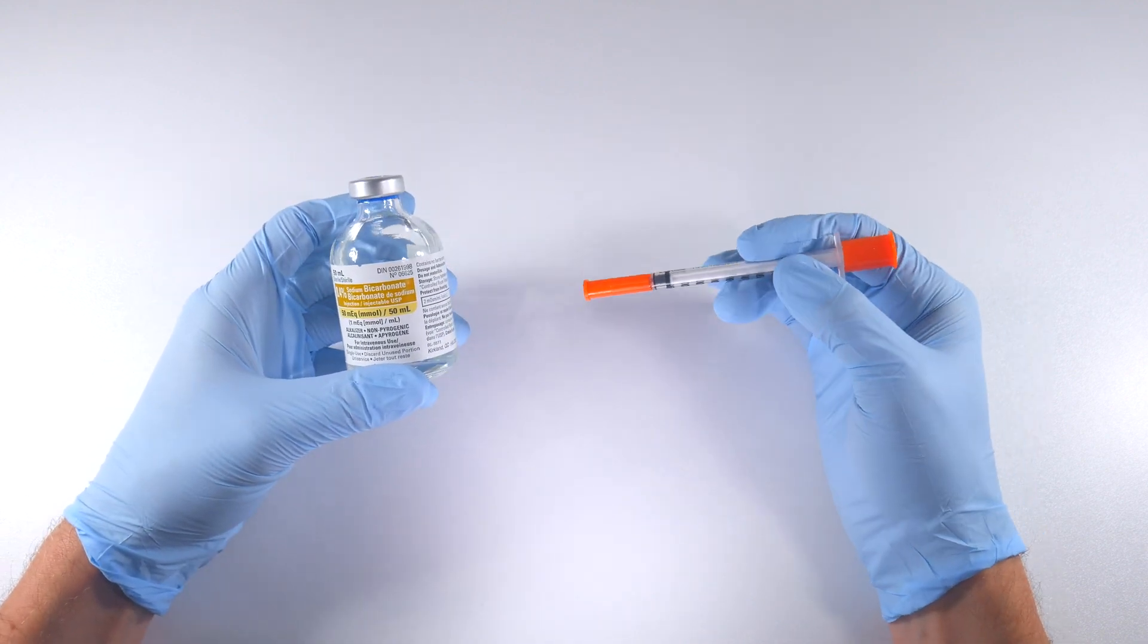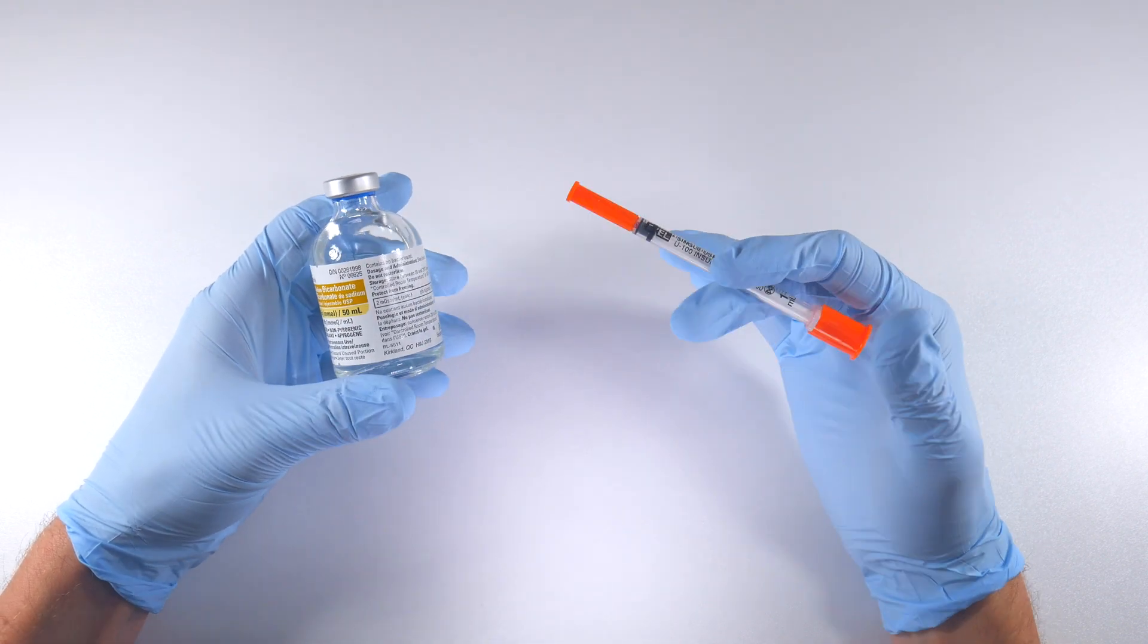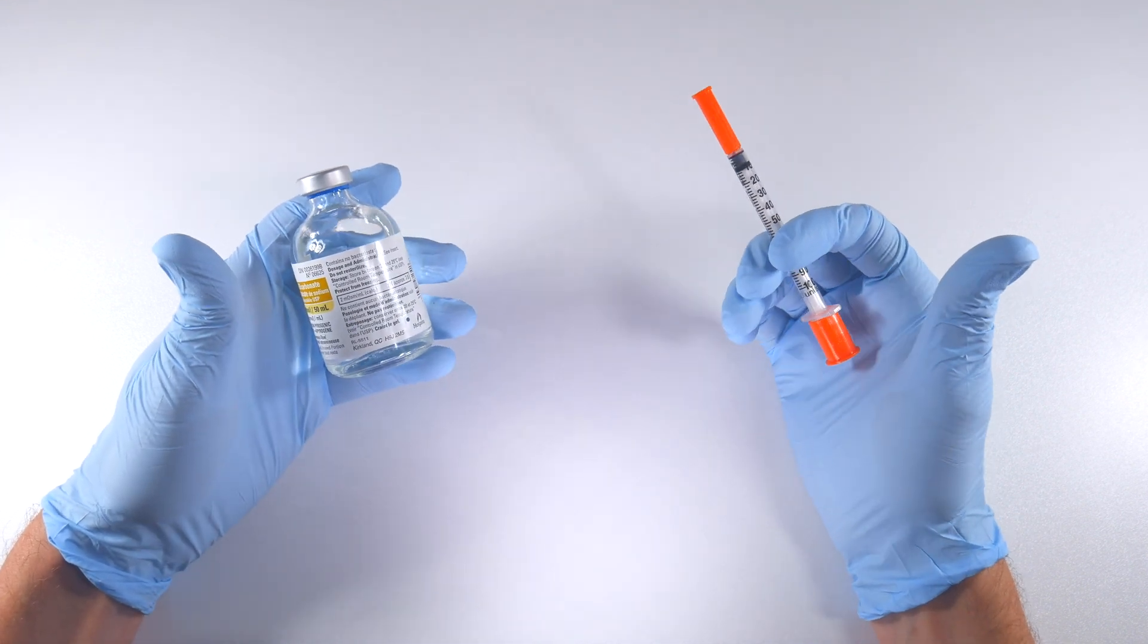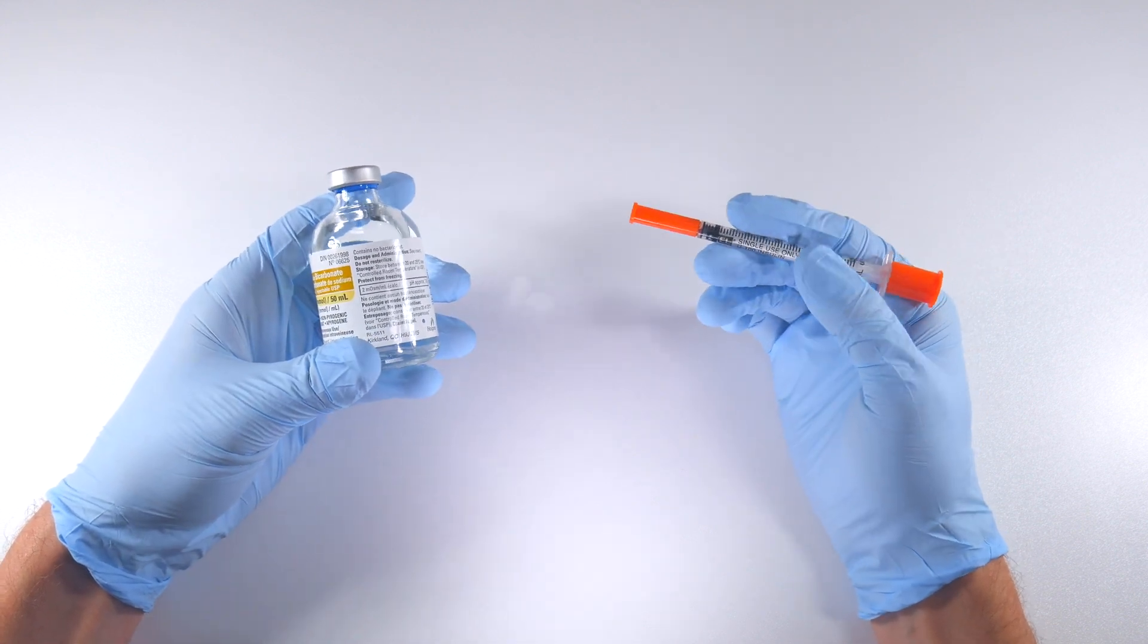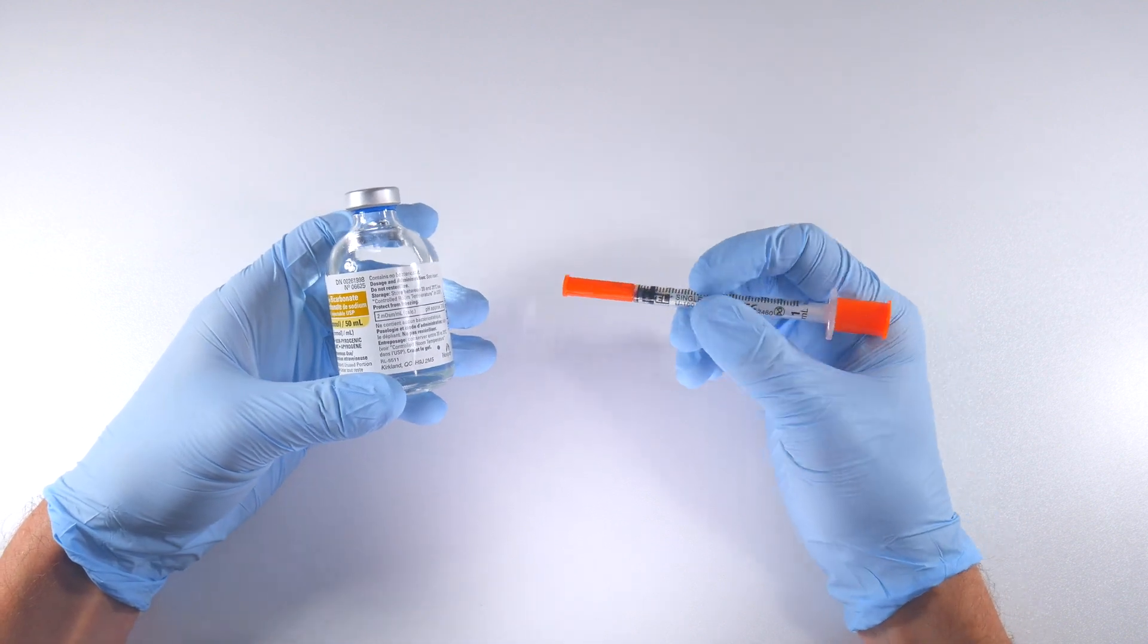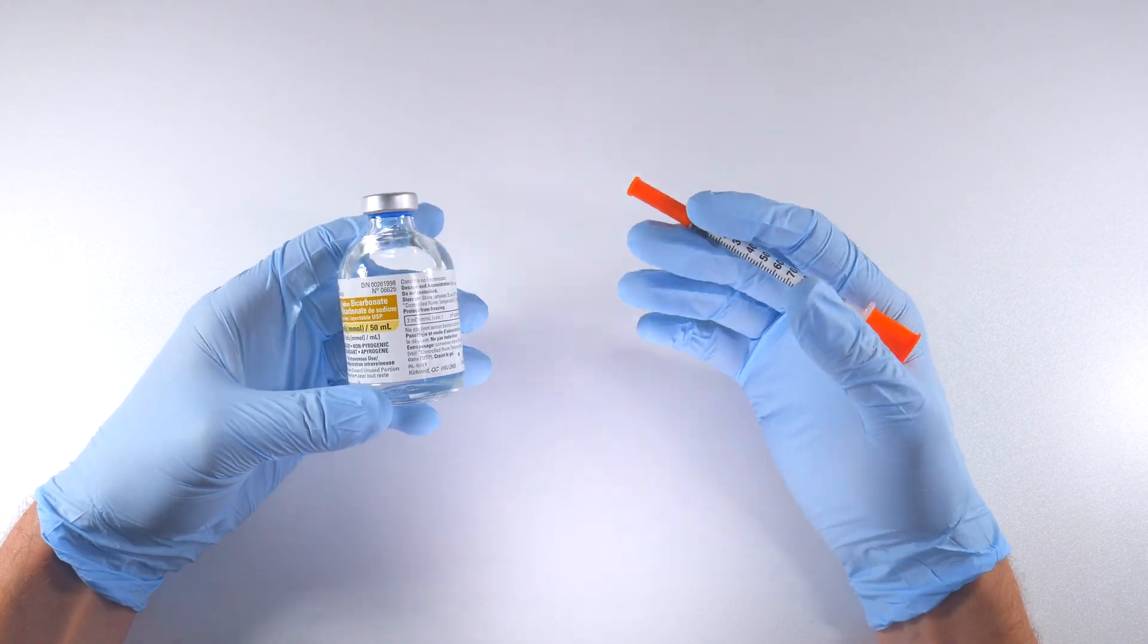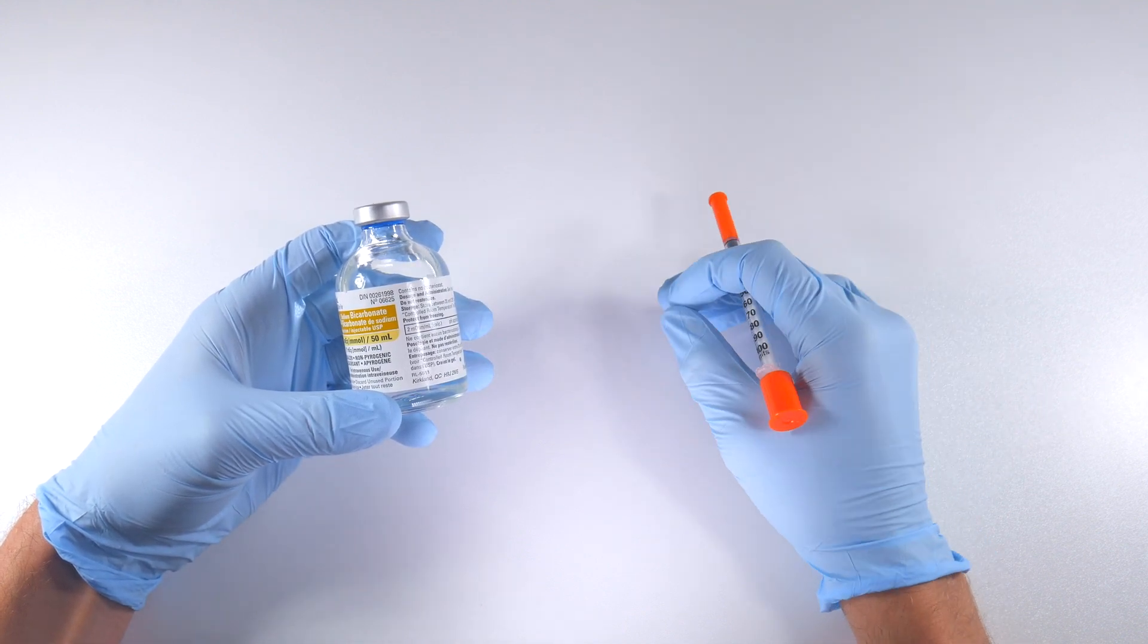Now I will use this in situations where there's infection. I'll use it in cases where perhaps you've got a third molar to take out and it's somewhat impacted and the patient isn't sedated—you're just freezing them up and you want them to be more profoundly numb. This is a great application for this stuff. So basically go ahead and do this, use it for whatever type of injection you want to do, and use it in those select situations where you need a little bit of help getting people numb.